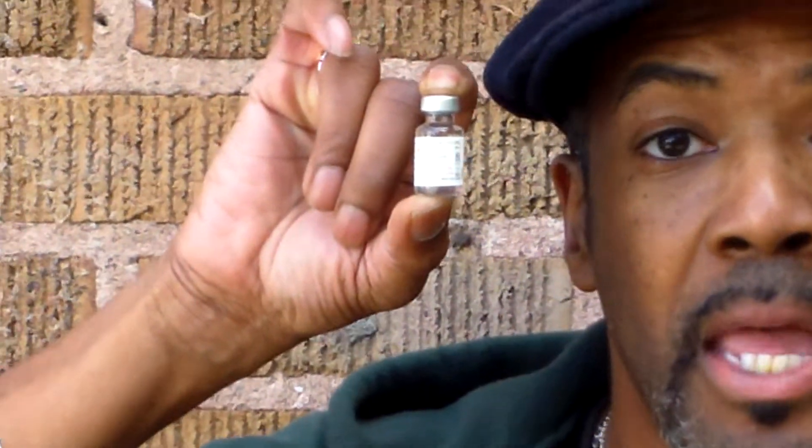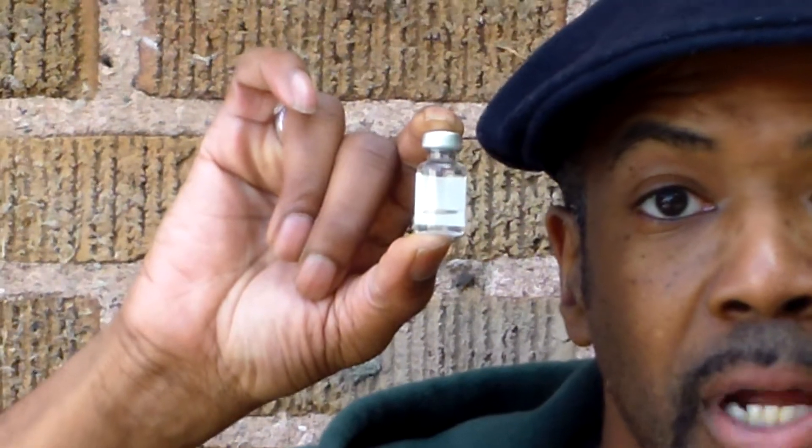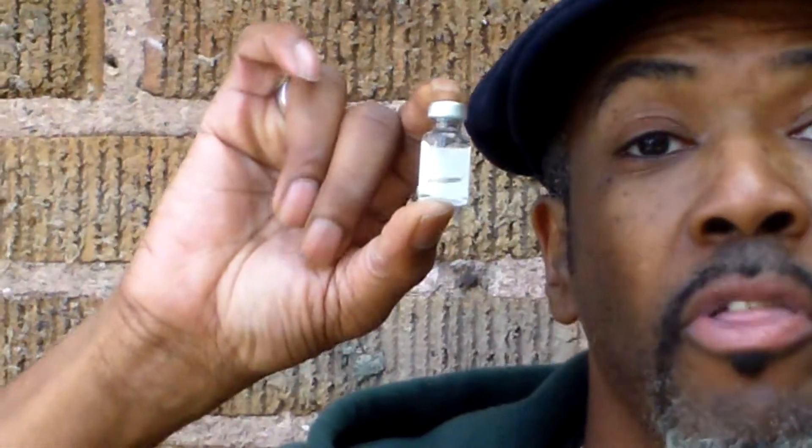Hi, I'm Reg Thomas and today I'm going to show you how to use Naloxone, or Narcan. What we have are three 1cc ampules — that's how much 1cc is — along with the three 1cc ampules, you also receive three 3cc syringes. Don't worry about the fact that it's that big; for the purposes of getting it in your body easier, that's fine.